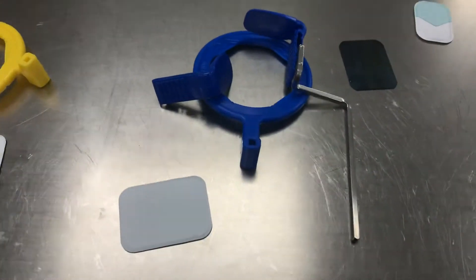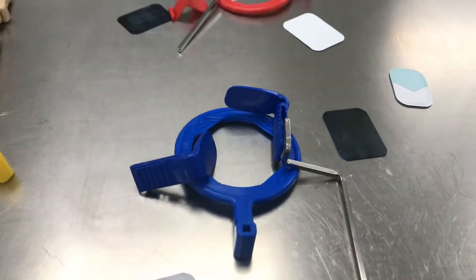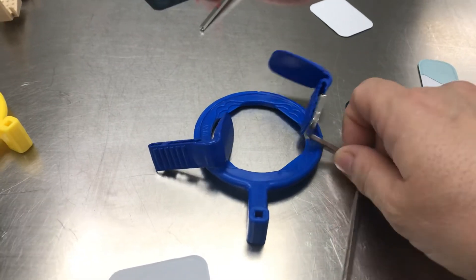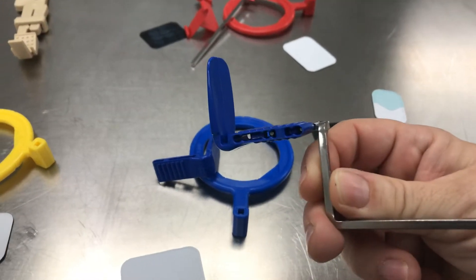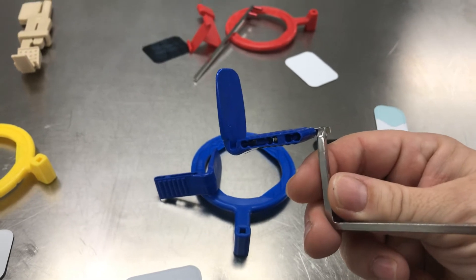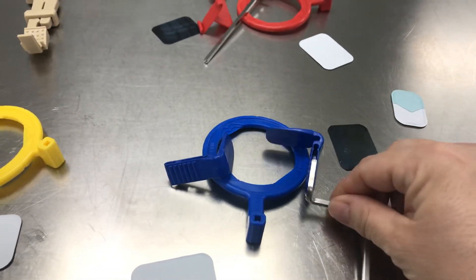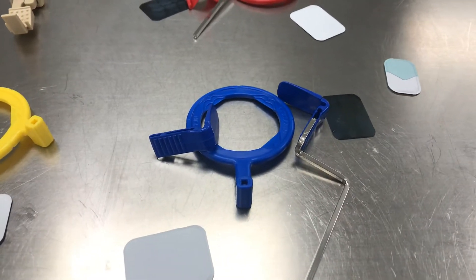So right here you have a blue. We came up with a little nickname for that. Blue is for anterior teeth. So blue is for the upper anterior and the lower anterior.